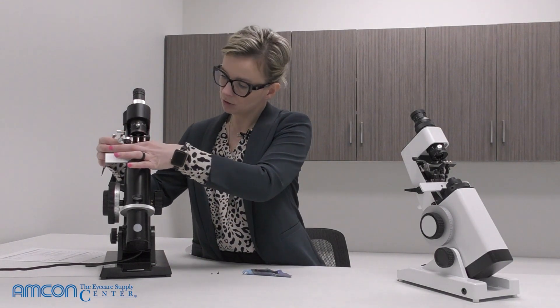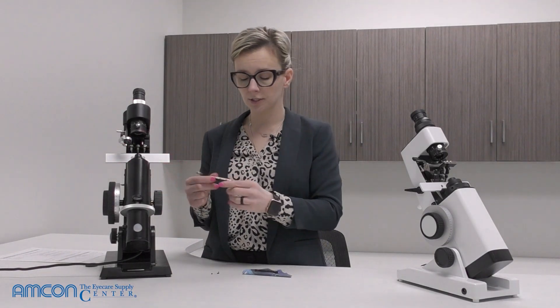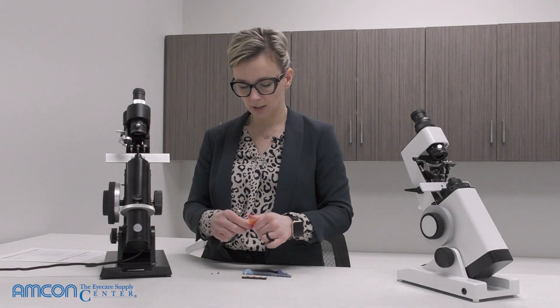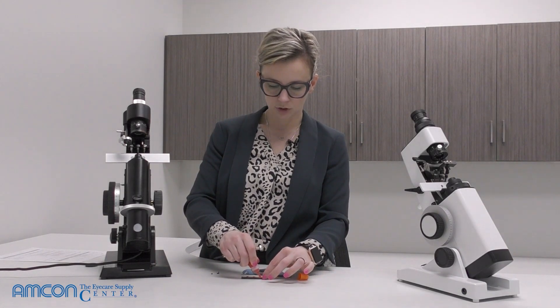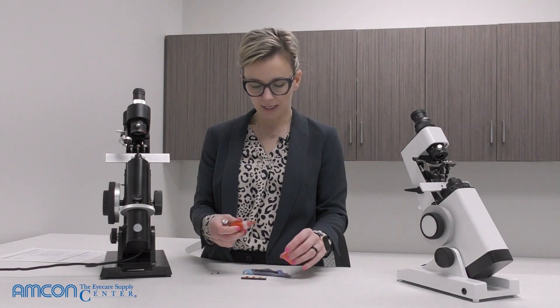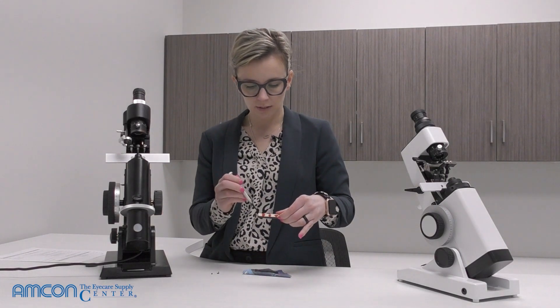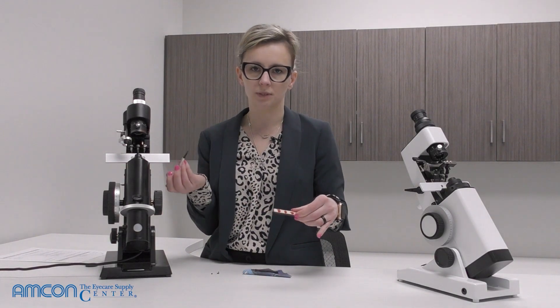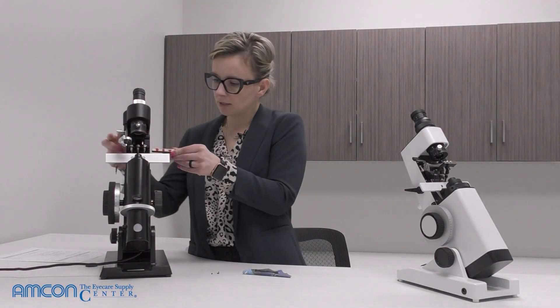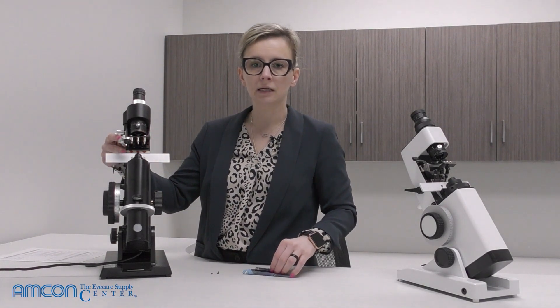If you want to save yourself the hassle of adding ink after reassembly, you can do it at this point — just dab ink onto the ink pad itself. You don't need to cover the whole pad, just the three dots where the marking pins actually go, since any extra ink would just dry up unused. Just those three dots, then slide it back in, attach the plate, screw everything back in, and you're good to go.